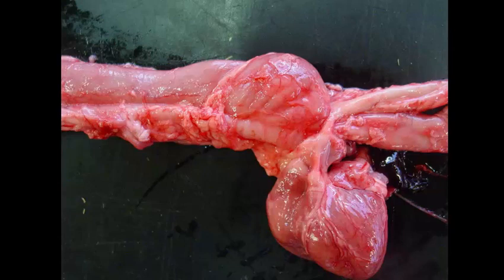Slide number 7 is tissue from a dog. I want 2 morphologic diagnoses for this case. Okay, time's up. I think most people recognize this. They get a little puzzled as to what to write down when they see this particular lesion.